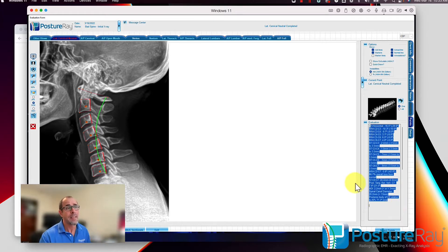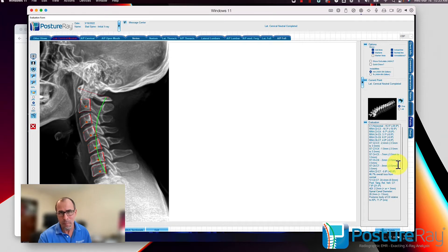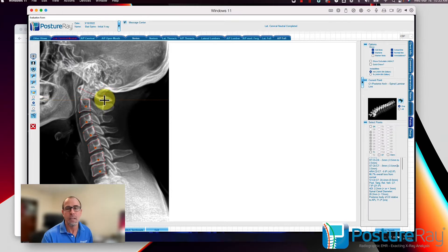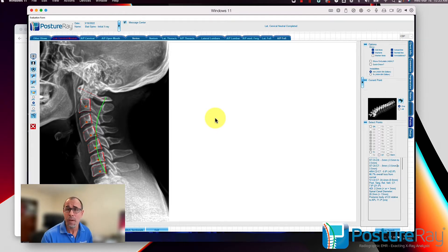Here's the best part: over time, select clinics that are part of our scientific committee — usually the researchers using our software system — will go in and verify the line locations, which you should as well. If they adjust any of those points, the software will be trained and retrain our neural networks to make the software that much more accurate. To give you an idea of how many X-rays it took to do this: around 30,000 marked X-rays — yes, 30,000. We can do automatic digitization on lateral cervical, lateral cervical flexion, and lateral cervical extension. More views will be added as we do more research and development.